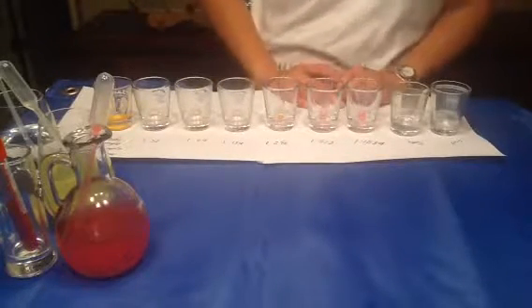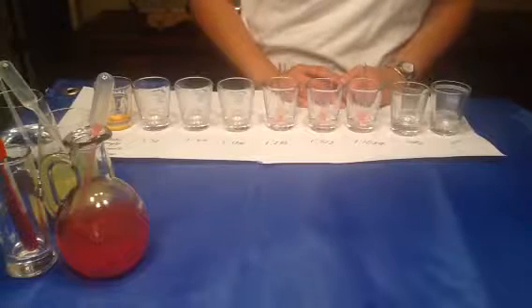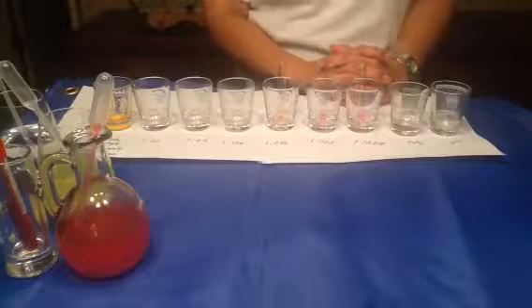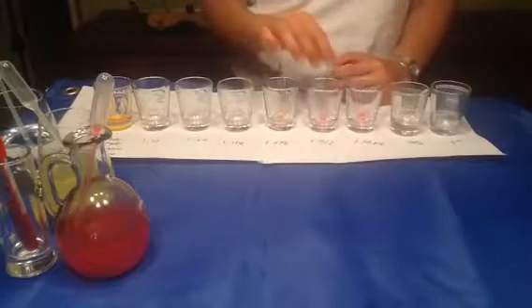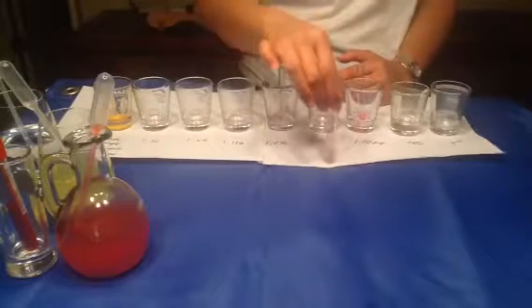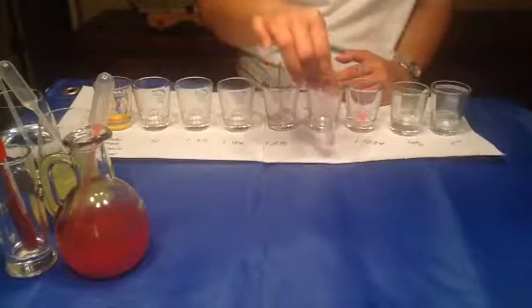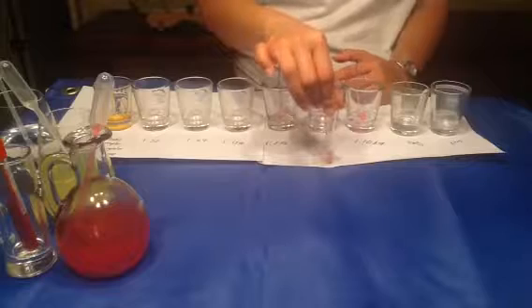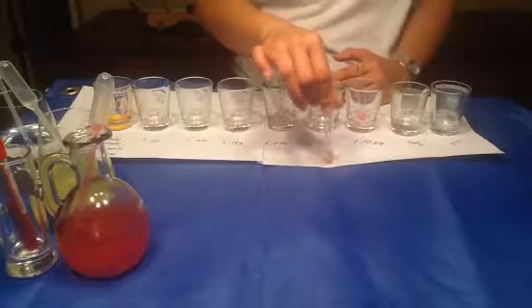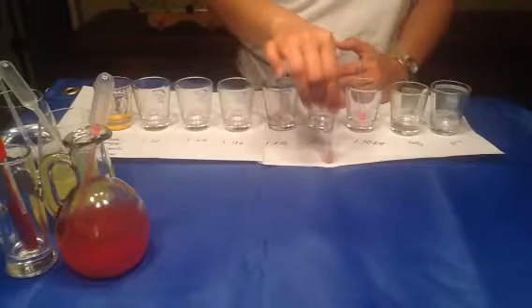Now you have to make sure that your test is correct. You can prove it by incubating the test tube, the last tube that is positive for agglutination, at 37 degrees Celsius for 30 minutes, and then investigating the agglutination at the bottom of the tube.